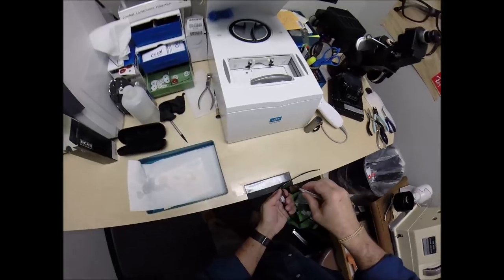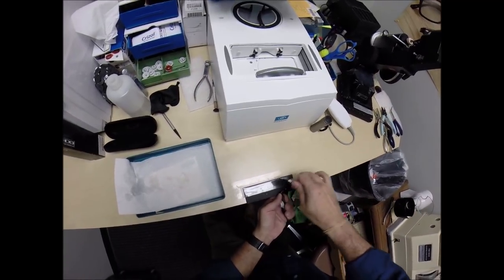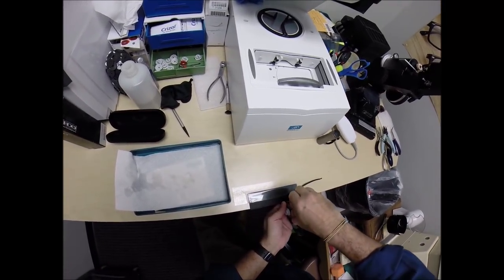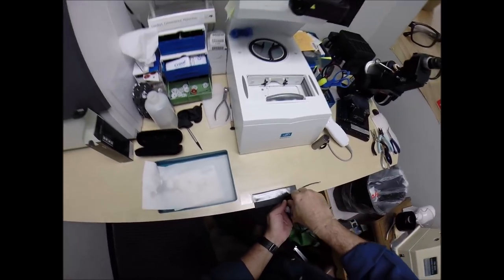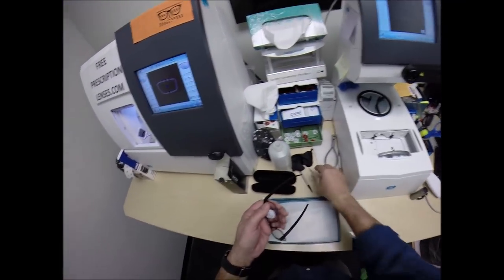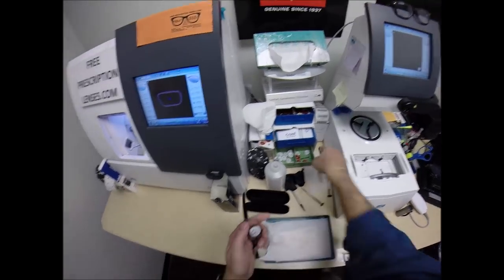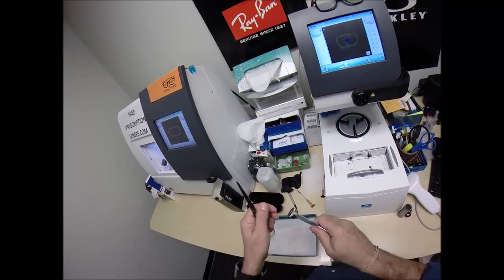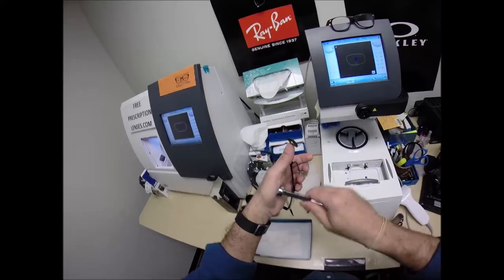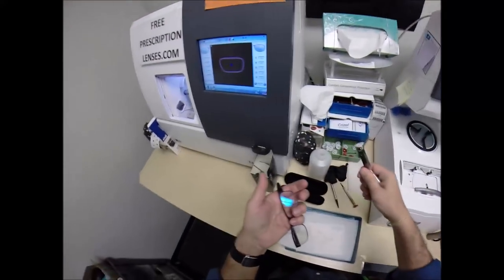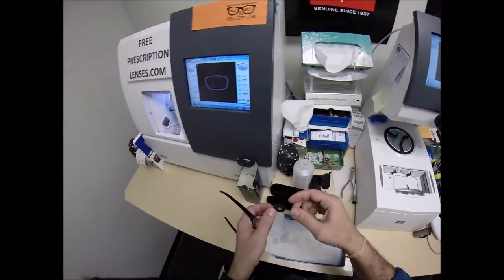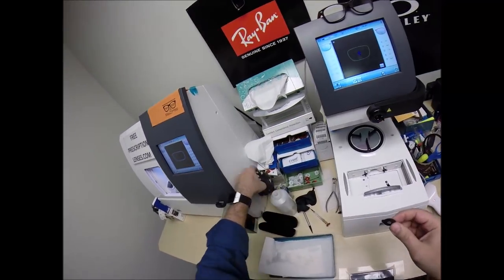I'm going to do a little bit of righty-tighty. Once I get it close, I do a visual inspection. I'm going to lay your frame down on a rubber mat to protect the finish of the frame against the hard table. Finish tightening that up. Go ahead and take this block off. It is no longer needed. Pull the sticker away. Use my hand-approved drying method for any moisture that's on there. Throw that back in the bin.